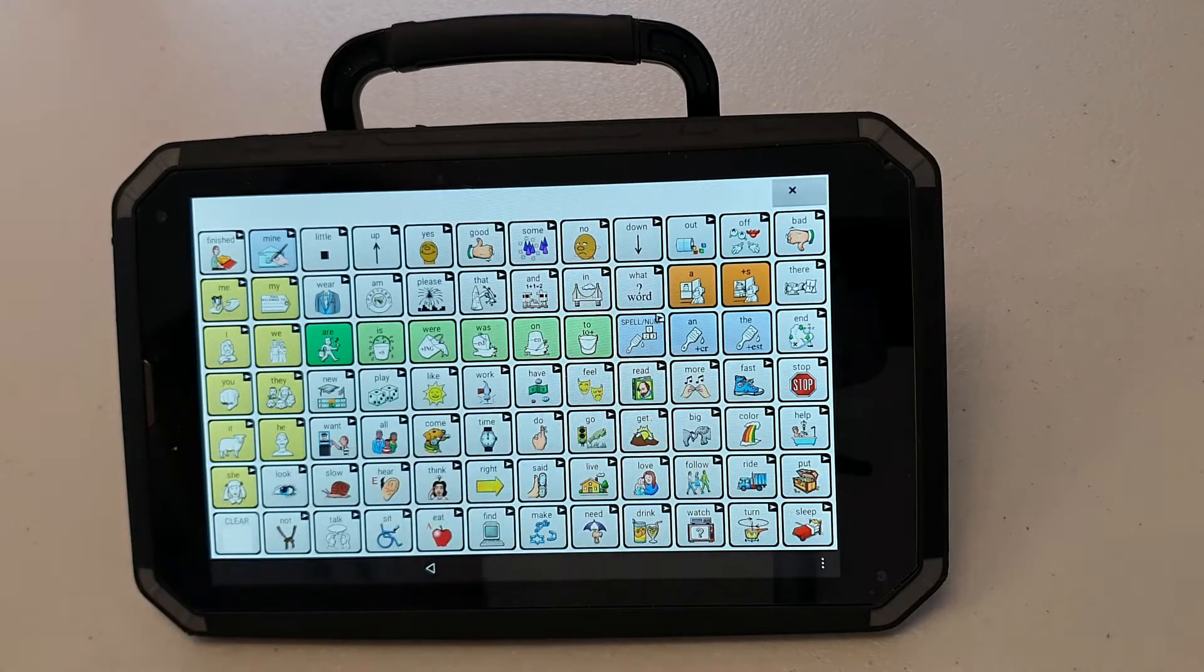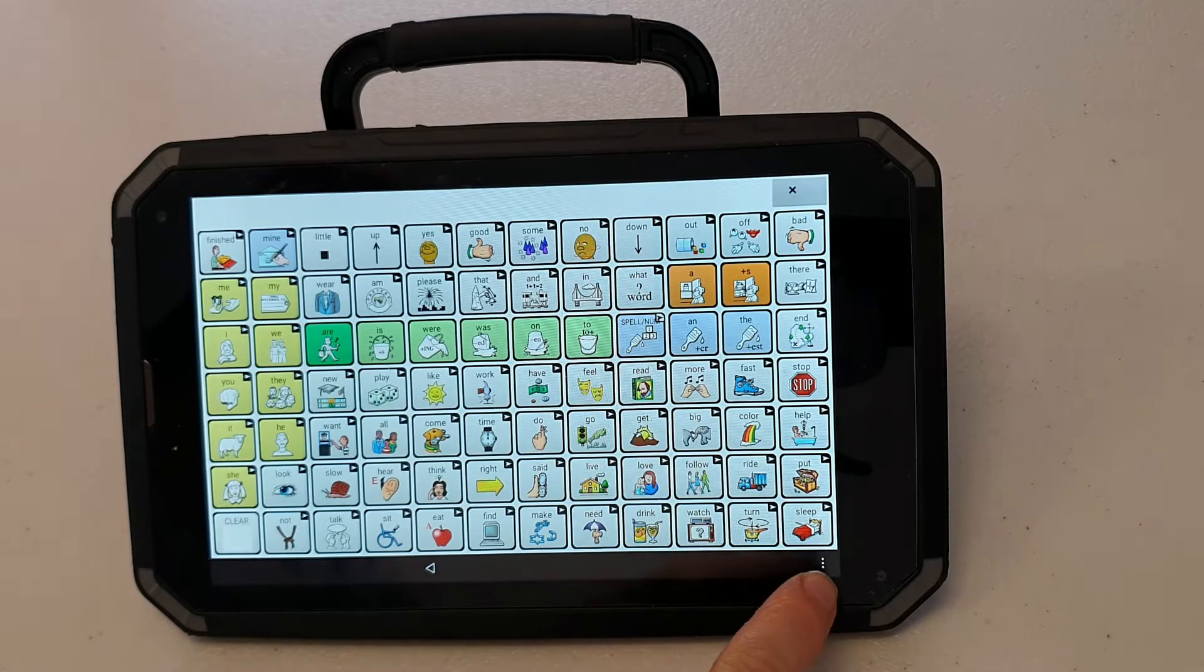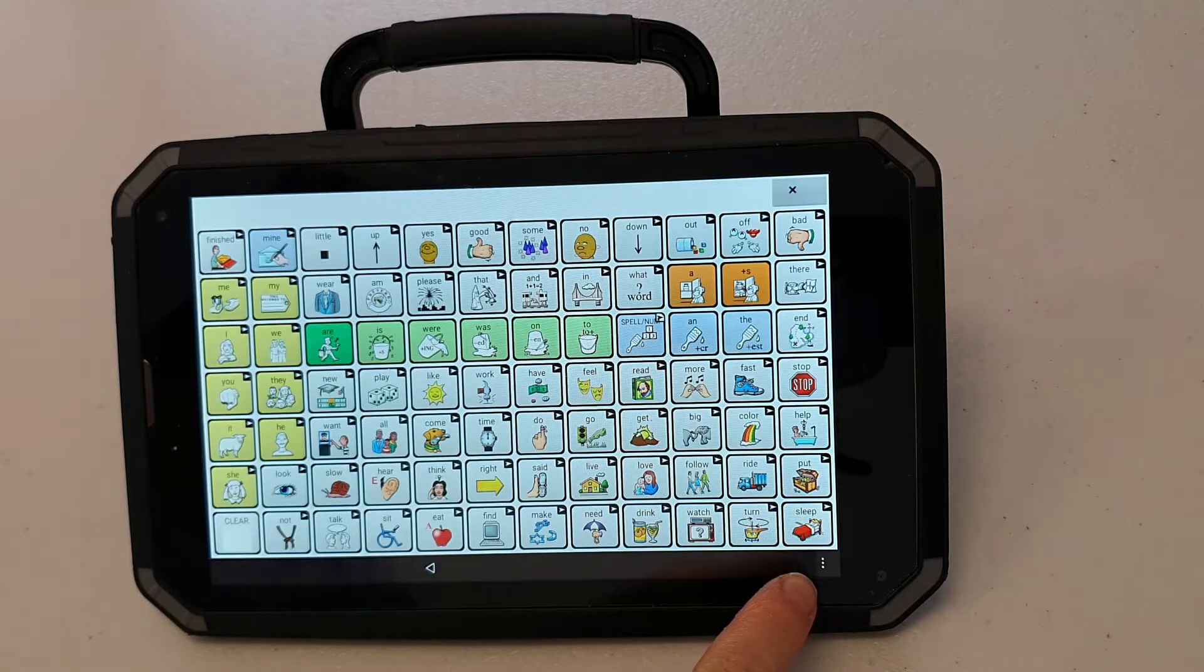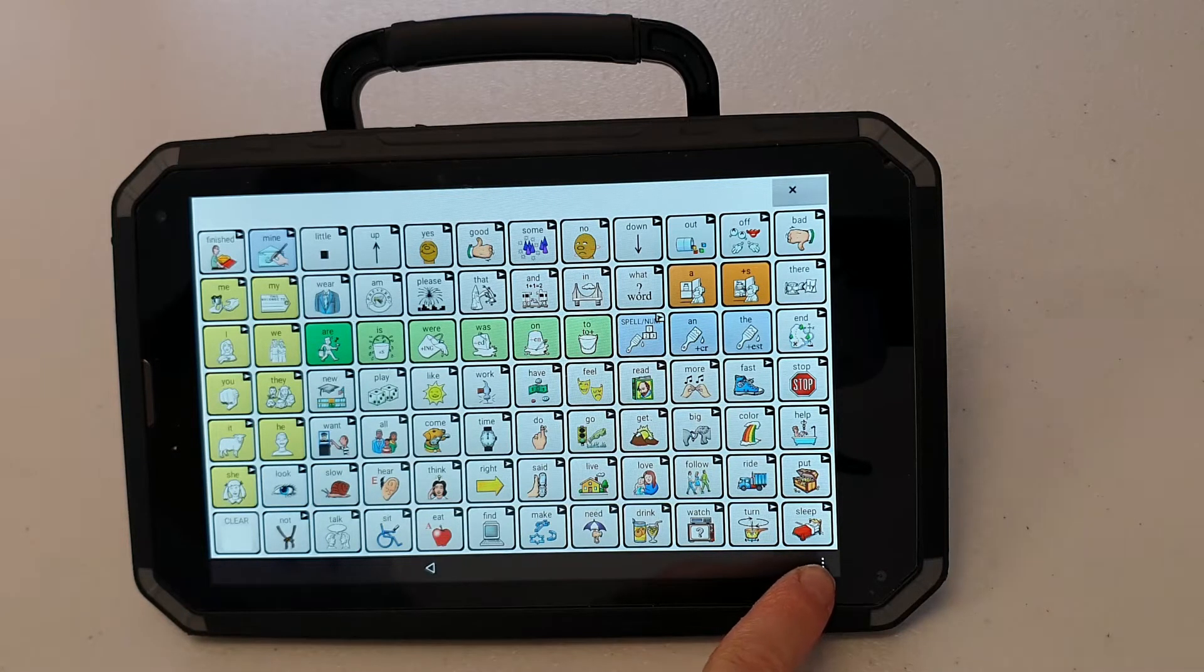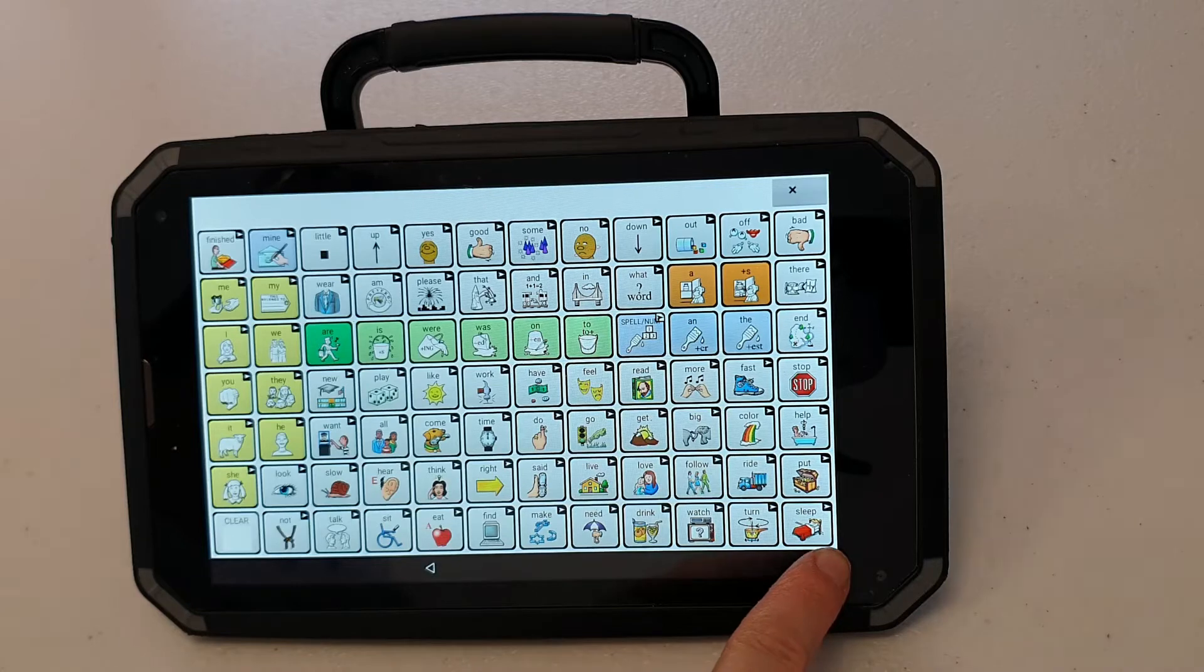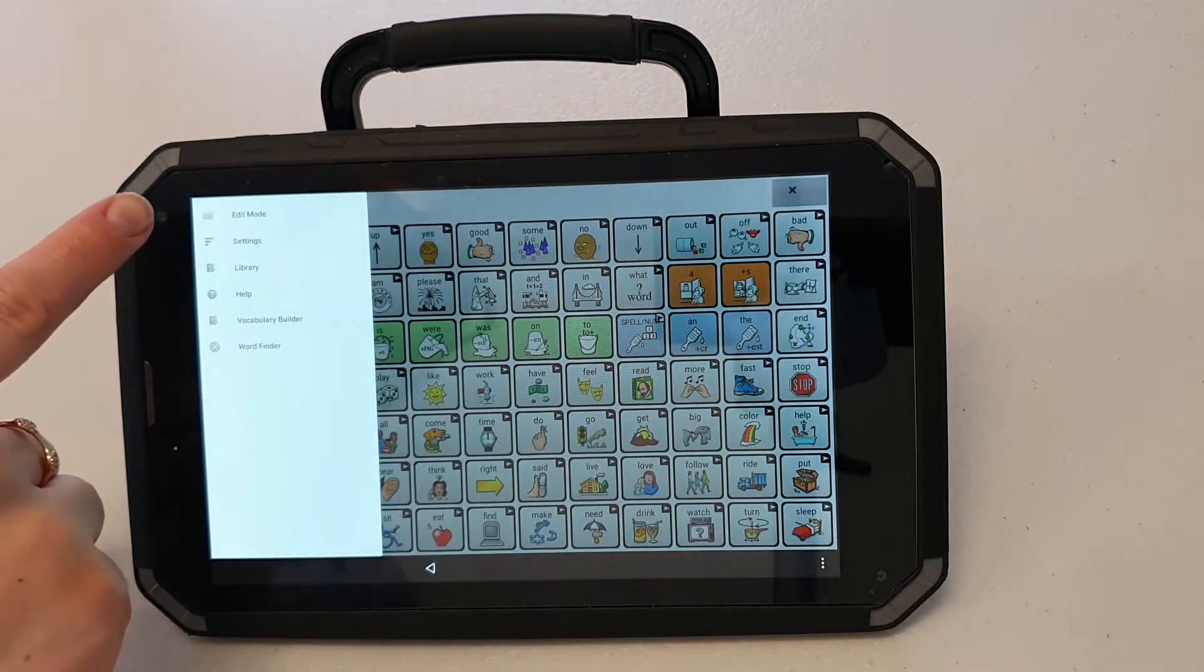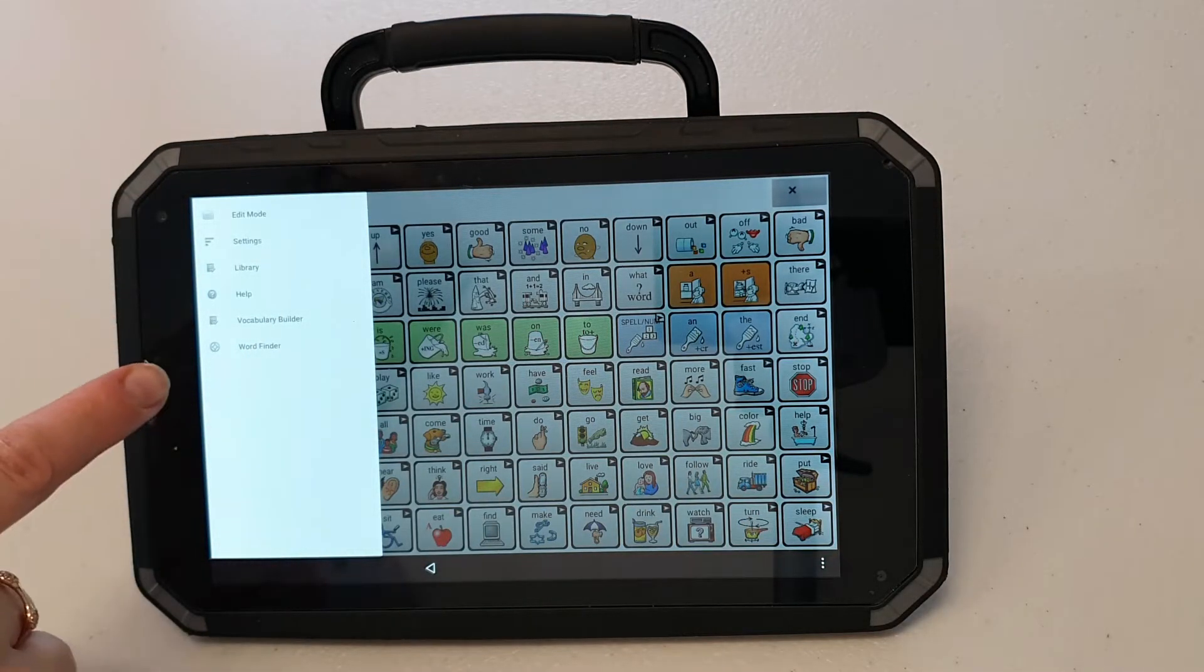I'm currently running software version 2.28. You'll notice if you're a pre-existing user that our menu has changed. To access the menu I press my menu button as always. The menu will now appear on the left hand side of my screen.